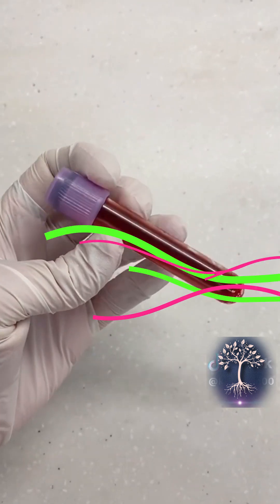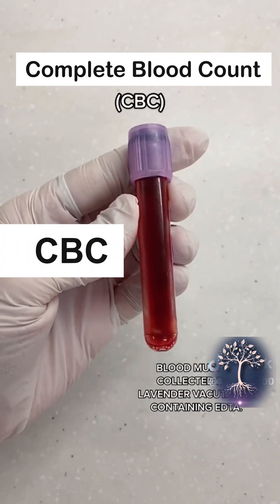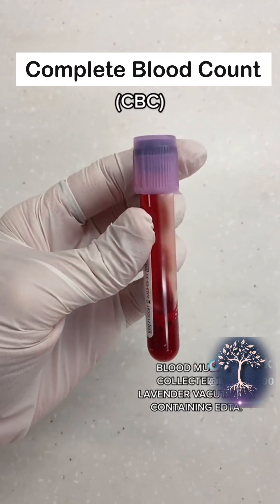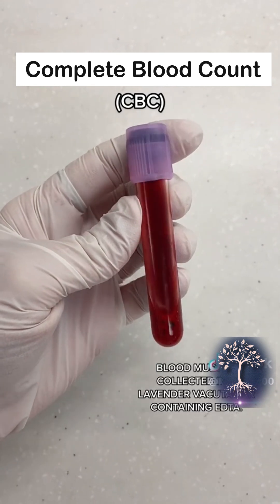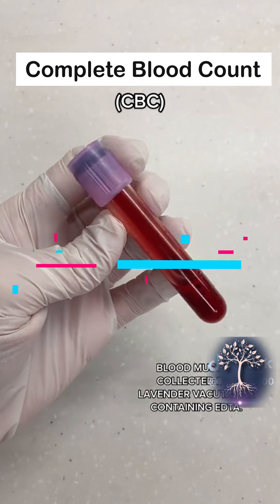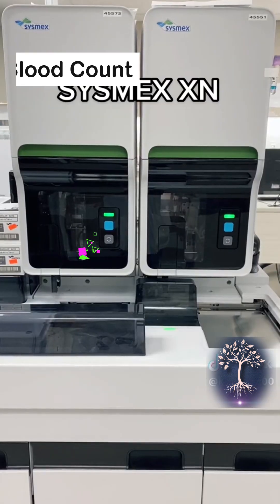In this video, we're going to be talking about the CBC, also known as the Complete Blood Count. I'm going to show you guys how it's run on our automated instrumentation and the complete process of this.